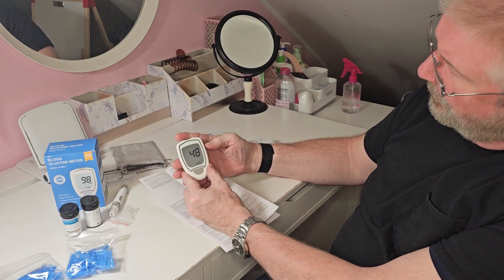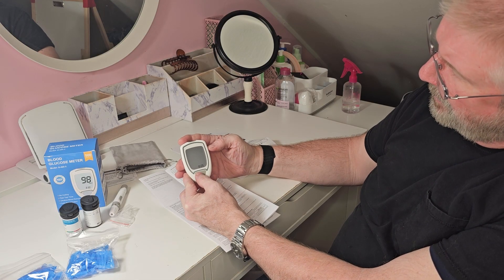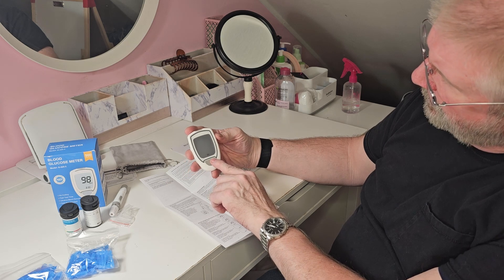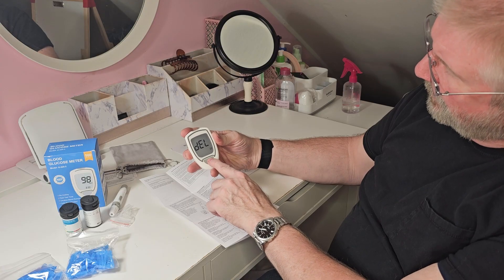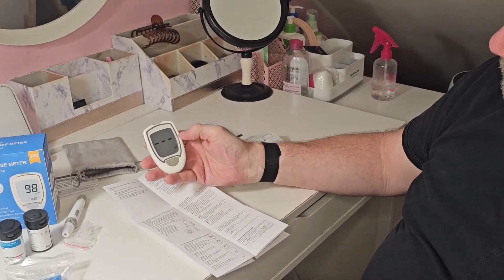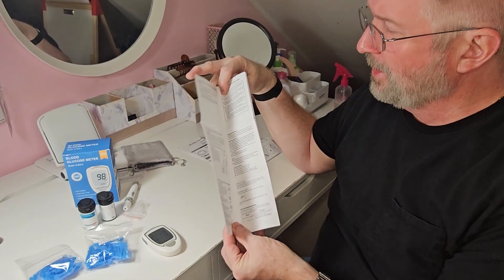Use up or down to set today's date. The next is your time — it defaults to military time, so it's about 22:09. Then one click will confirm and you're ready to start testing. Page 13 in the manual is how you set your time and date.